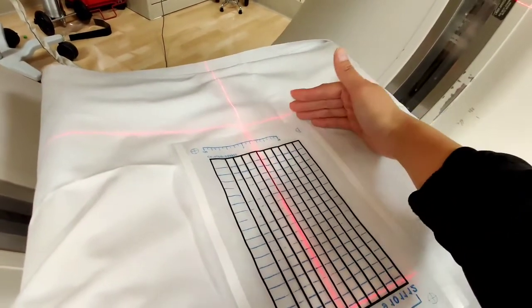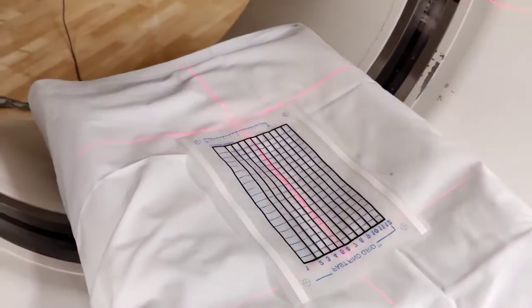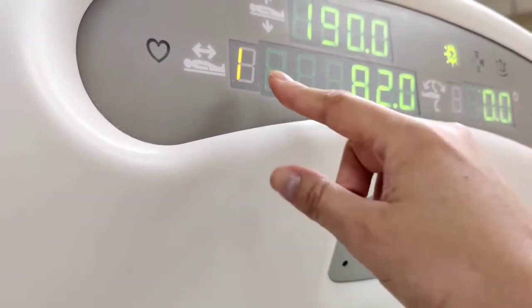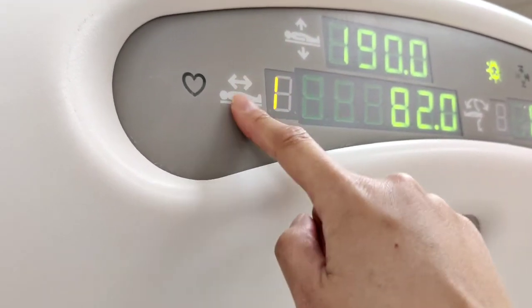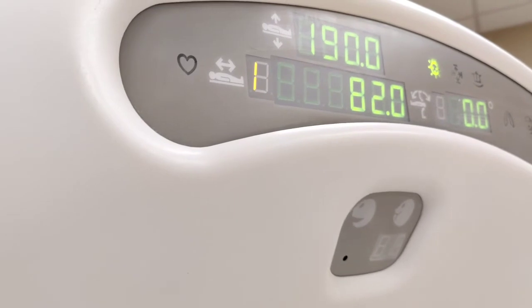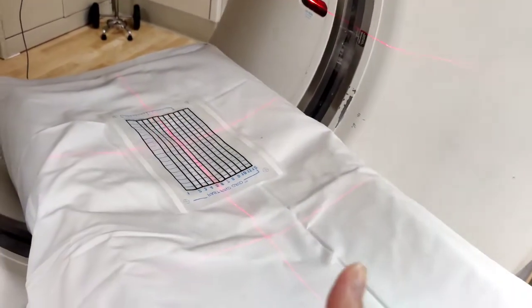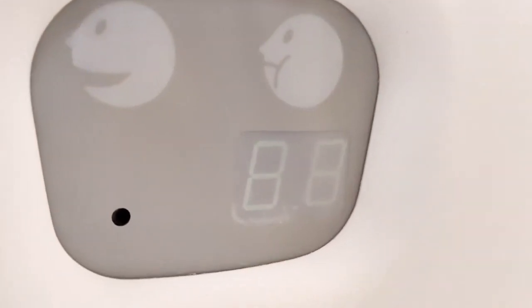You can see how it changed to S — superior. So from zero, above is superior and below is inferior. When this goes up you know it's going higher — superior from your zero point — and going down is inferior. When you set up your numbers on the machine, S means positive and I means negative. So instead of negative and positive, they use I for inferior and S for superior. Know your superior and inferior numbers so you can set things correctly when scanning. And of course we have our step buttons here — this is for fluoroscopy. That's it for now — toodles noodles, stay cool, stay awesome!